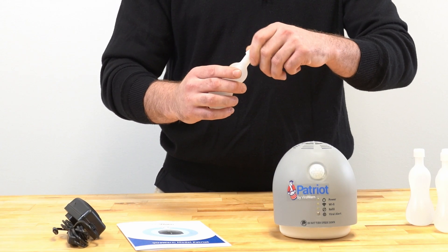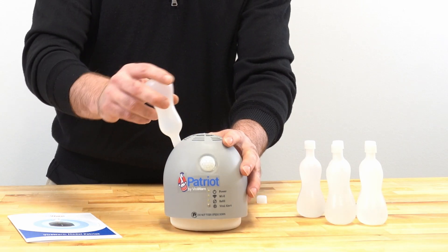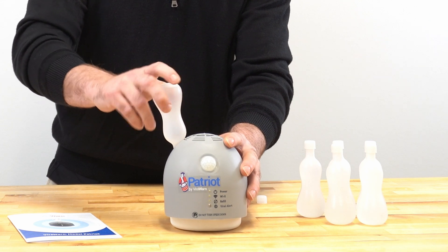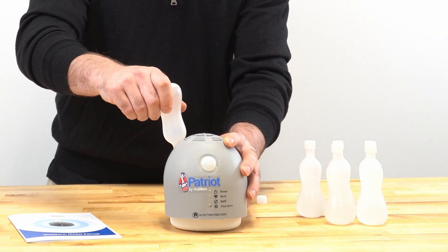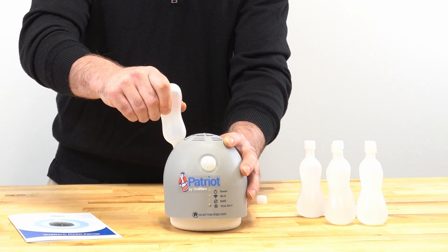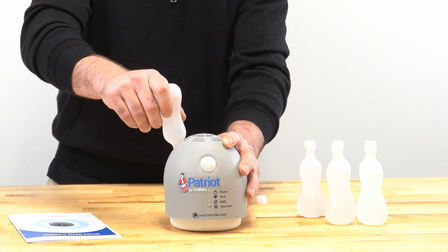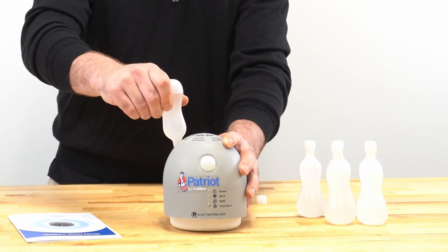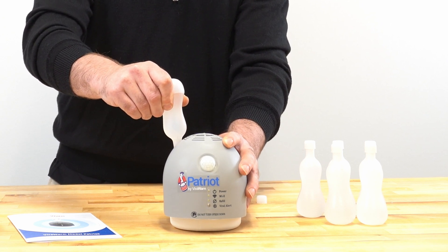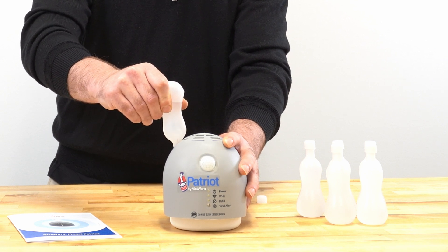Take the first refill bottle and rotate the cap to open the bottle as shown. Please do not throw away the cap. Next, you will be inserting the bottle into the refill port at the top of the device, ensuring that the seal on the bottle has been broken when inserting it into the refill port. Now I'm inverting the refill bottle and inserting it through the refill port, while ensuring that the seal has been broken and the liquid media is emptying from the bottle into the device through the refill port.